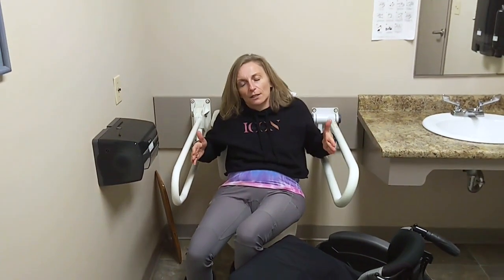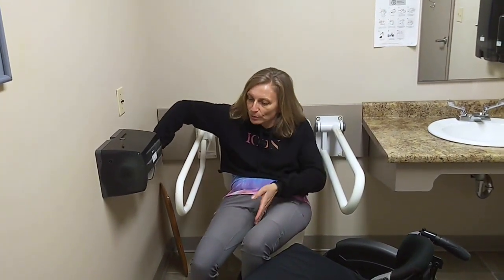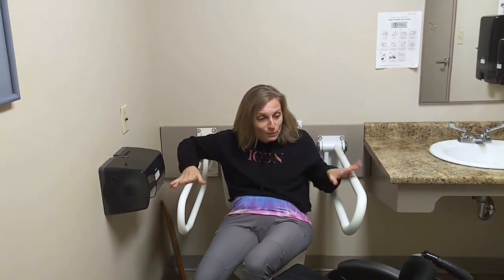The other reason why there's a drop-down on both sides of the toilet is because of the distance from the wall. The center line of the toilet is farther than what would make an L-bar useful — it's too far, and you'd be reaching too far and putting strain on your shoulder to do a transfer that way. That's why they did the two full drop-down bars. They were repurposed bars, which is why there are two different ones.